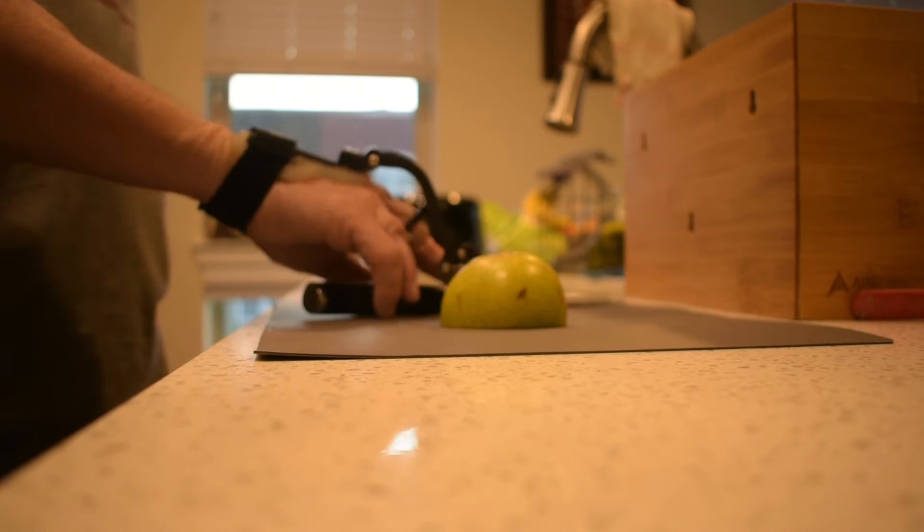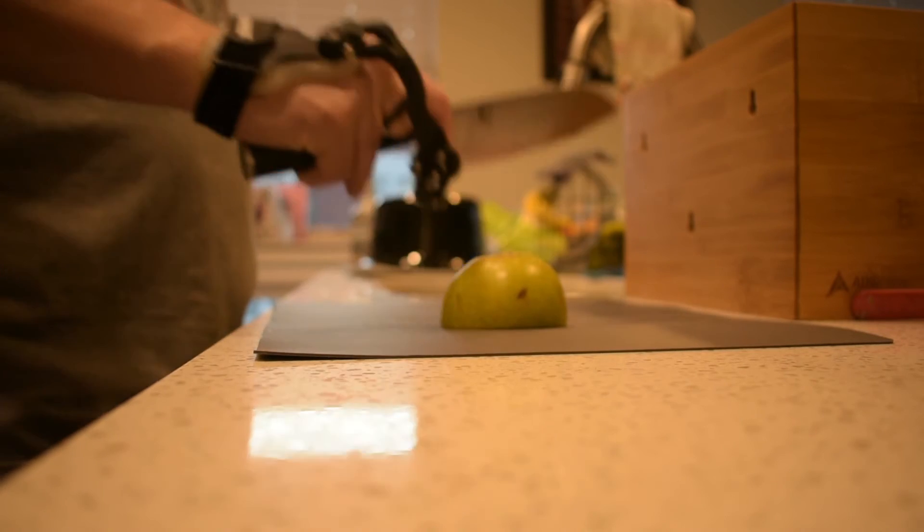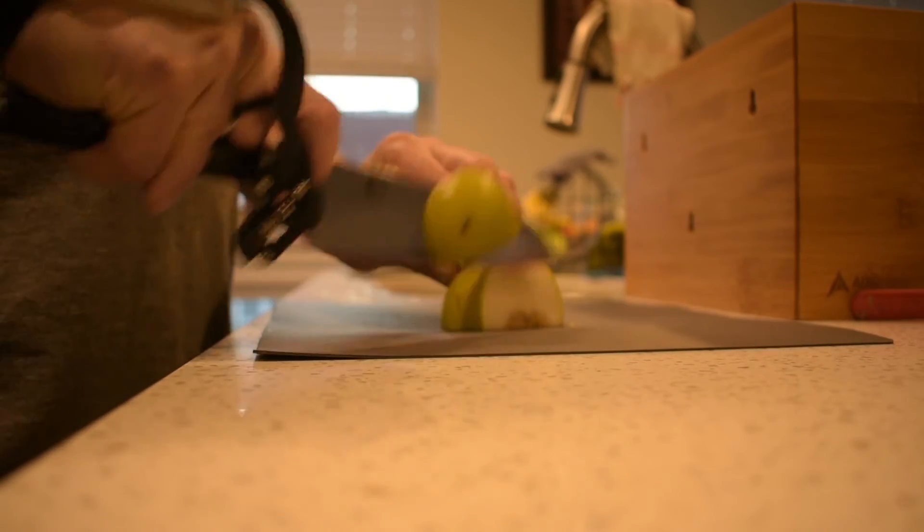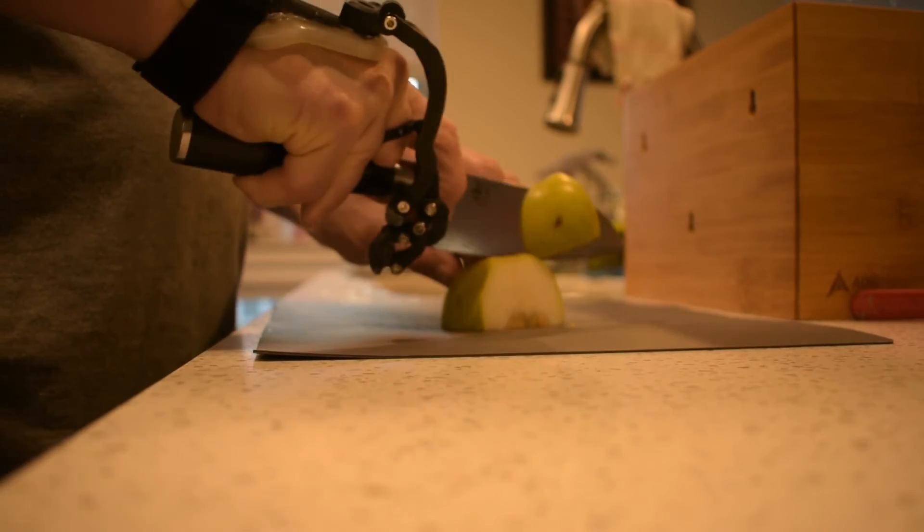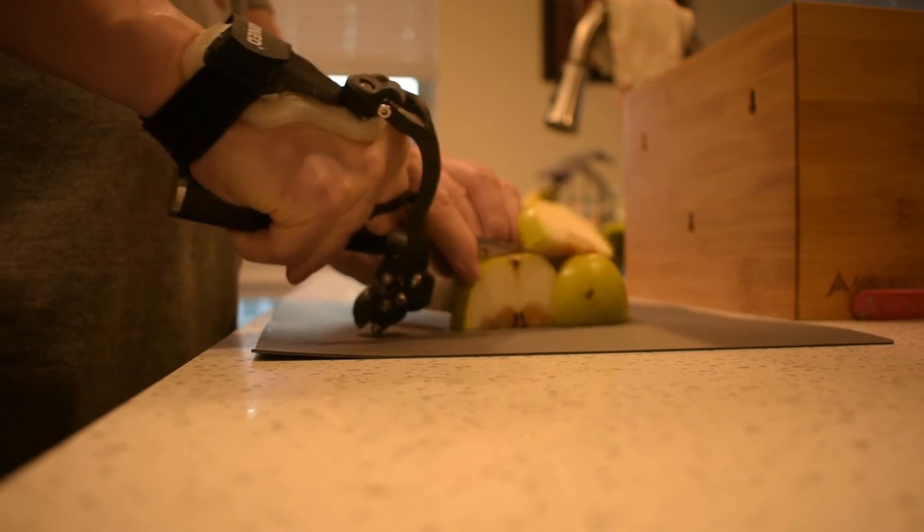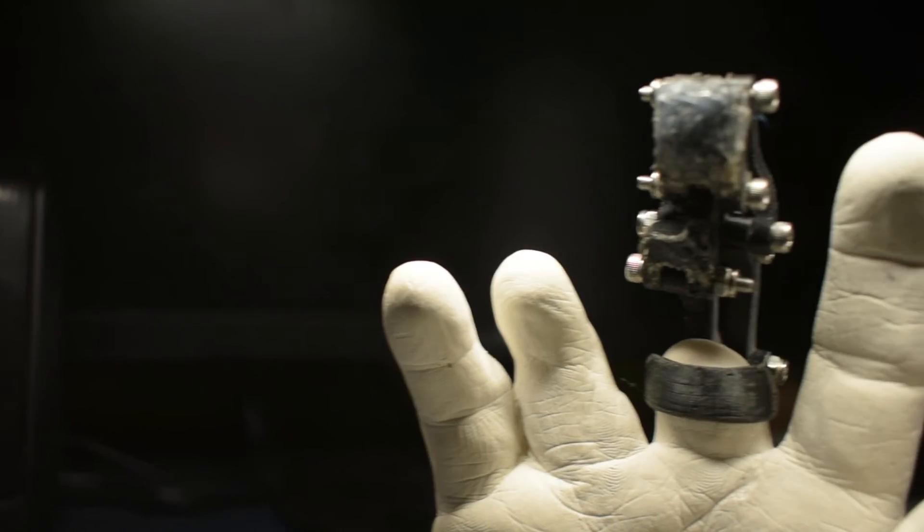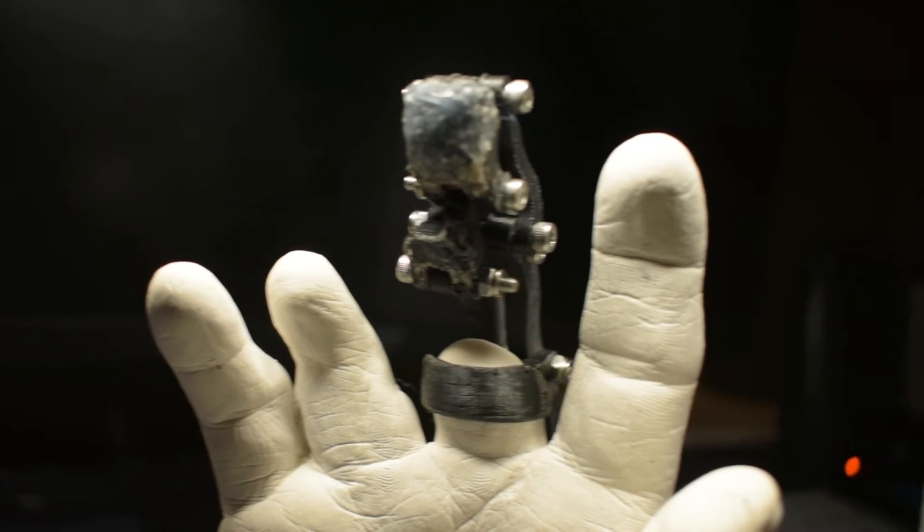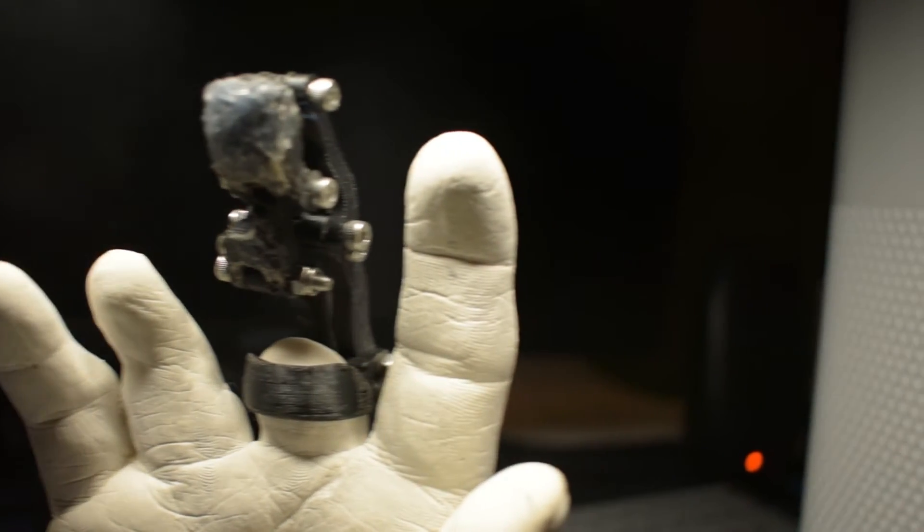Here you can see that tasks that were once tedious due to an unbalanced grip, like holding tools, cutting food in the kitchen, and opening doors are now much easier. Friction is enhanced on the finger with a silicone coating that mimics the characteristics of human skin.